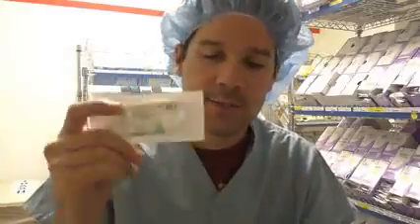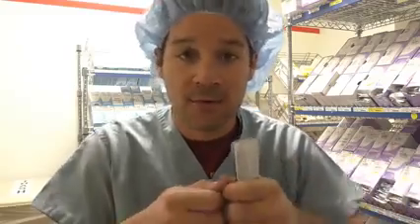And this suture is kind of interesting. It's a little stretchy. They call it nylon suture, I'm assuming because it's made of some sort of nylon. It's not super stretchy like nylon pants or something like that. But it does have a stretch to it, and it's interesting when you're tying with it. A lot of the times you'll see this used across all the specialties.